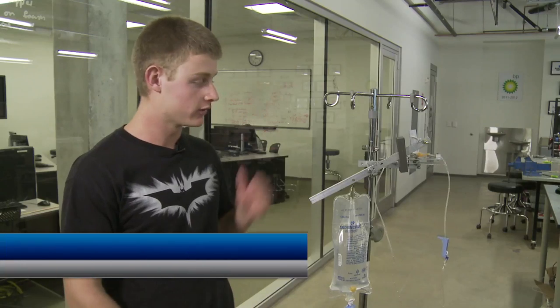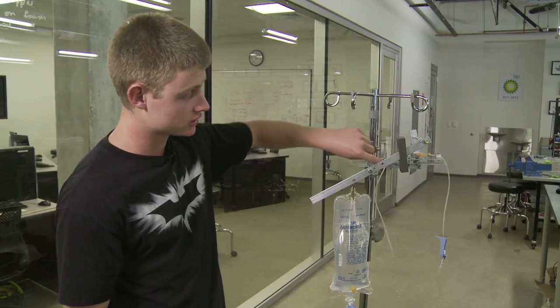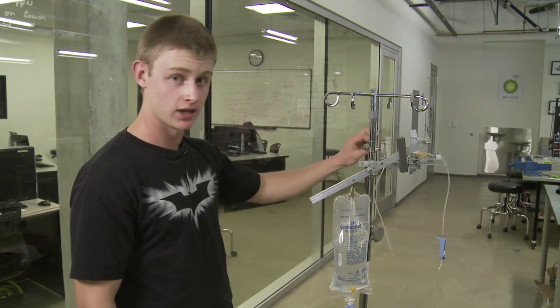A physician would set up our device IV DRIP in three simple steps. First, they'd permanently attach it to either a wall using bolts or on any size IV pole using hose clamps.